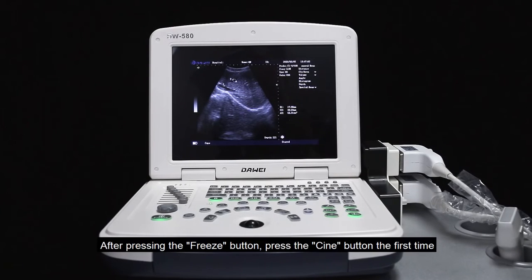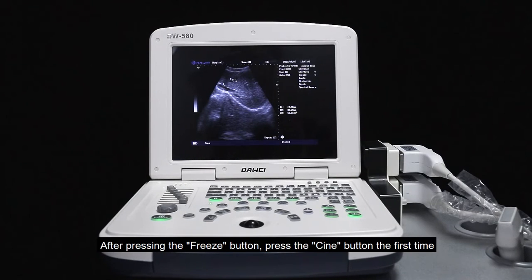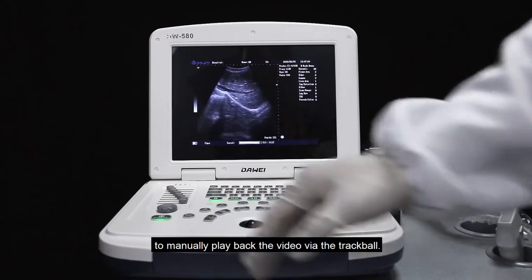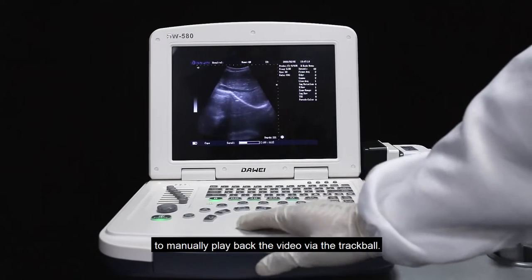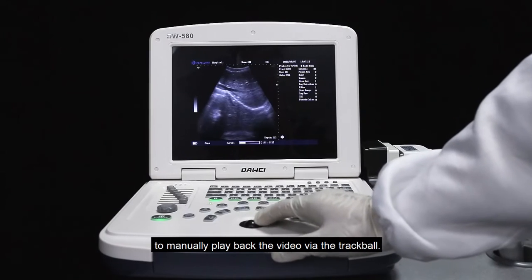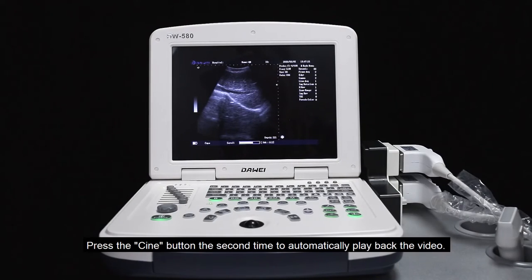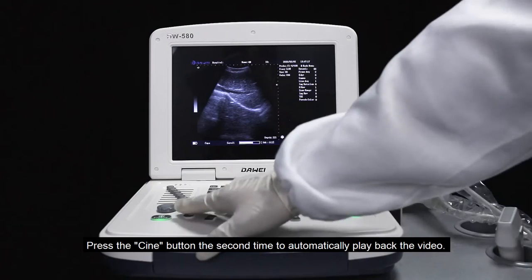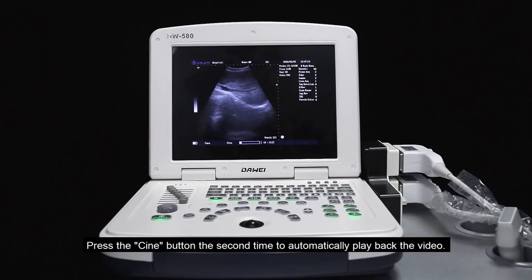After pressing the freeze button, press the cine button the first time to manually play back the video via the trackball. Press the cine button a second time to automatically play back the video.